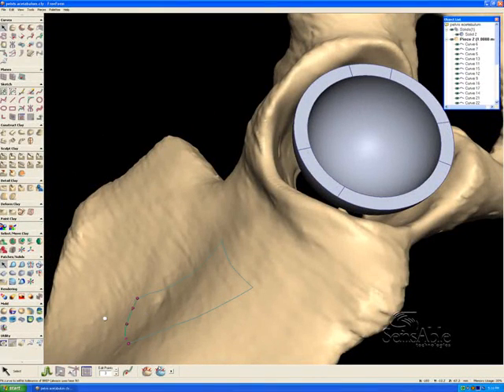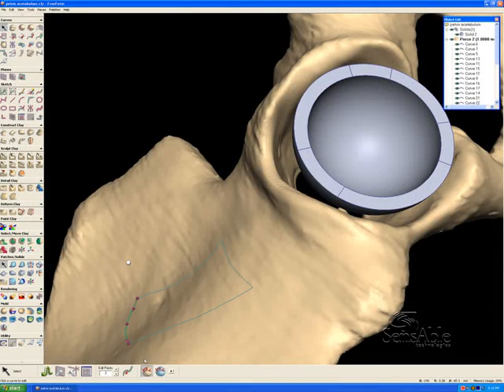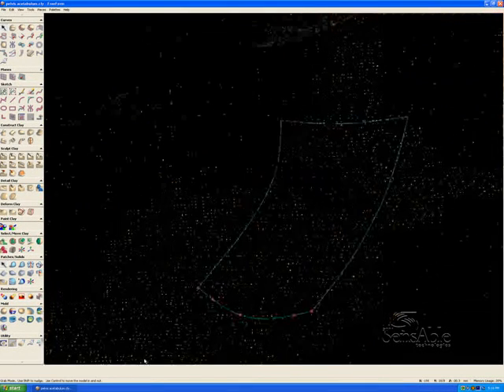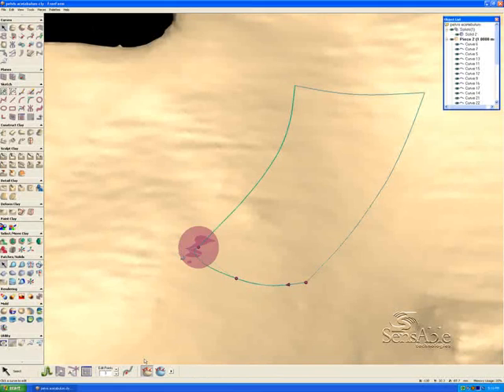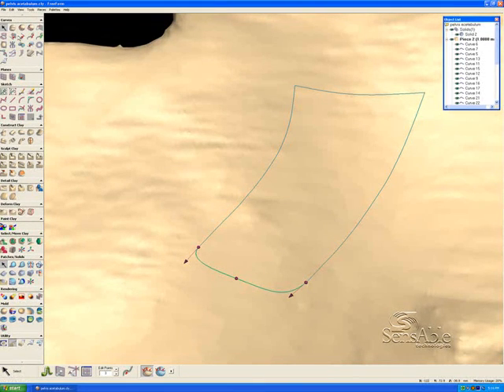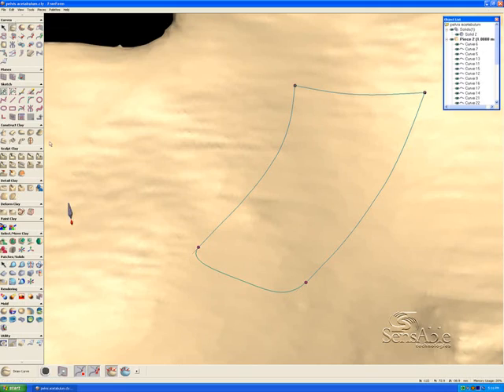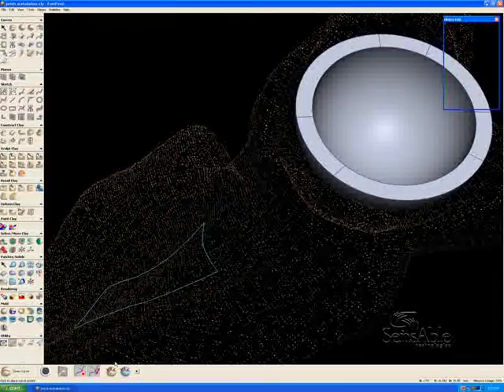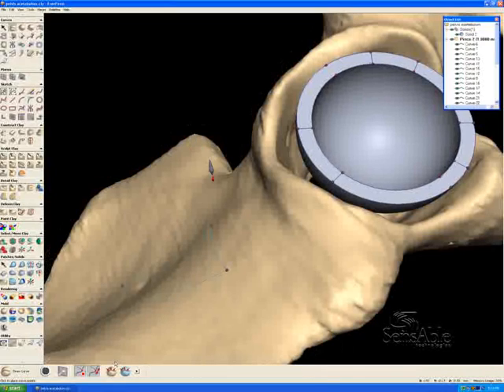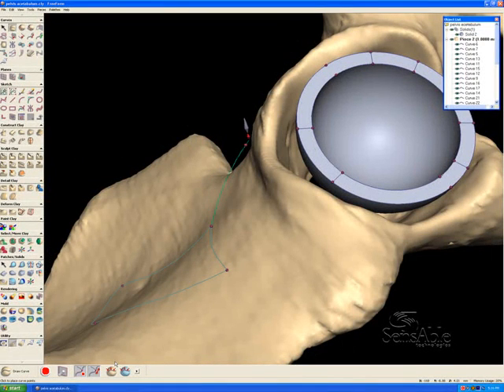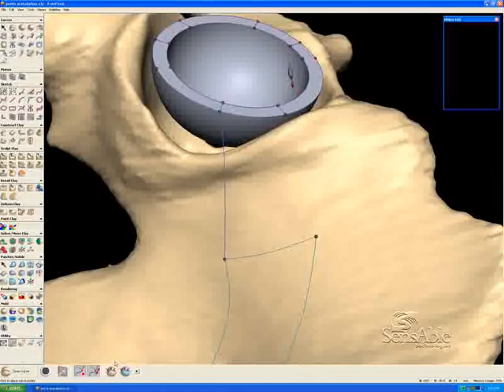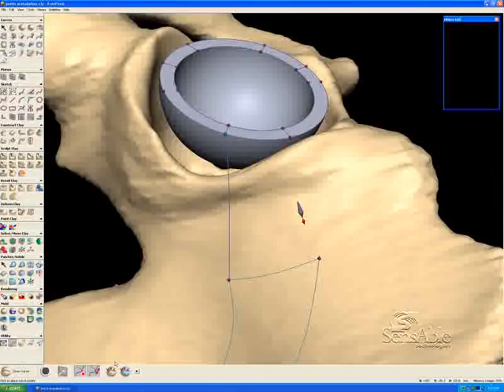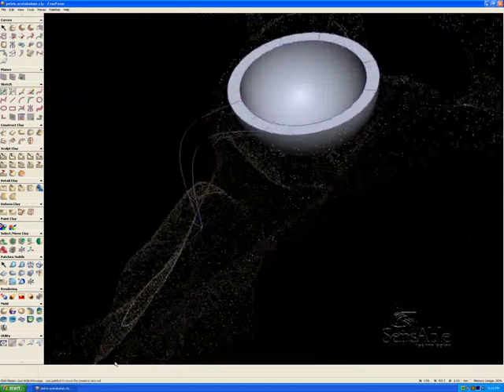The next step is to go into our curve drawing tool again. I'm going to turn off snap to clay, because I want these curves to be free-floating in space. And I'm going to make three clicks here, one at the beginning, one at the end, and one in the middle. So one in the middle, and one at the end.